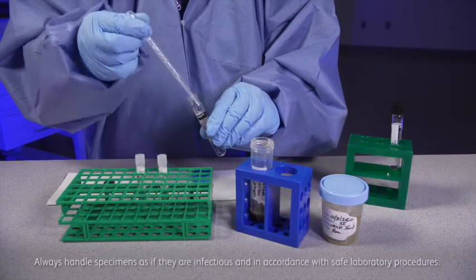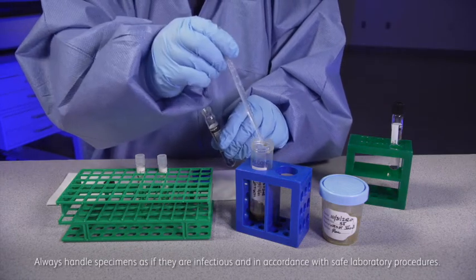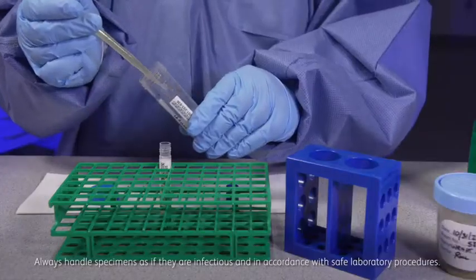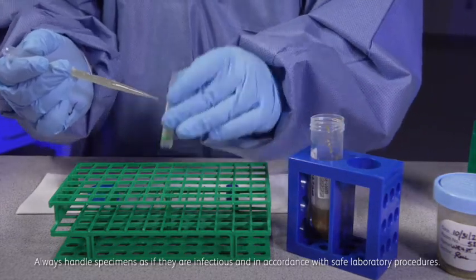The raw sputum or prepared concentrated sputum sediment is treated with BD MAX STR. The BD MAX STR-treated sample is then transferred to a labeled BD MAX MDR-TB sample tube.